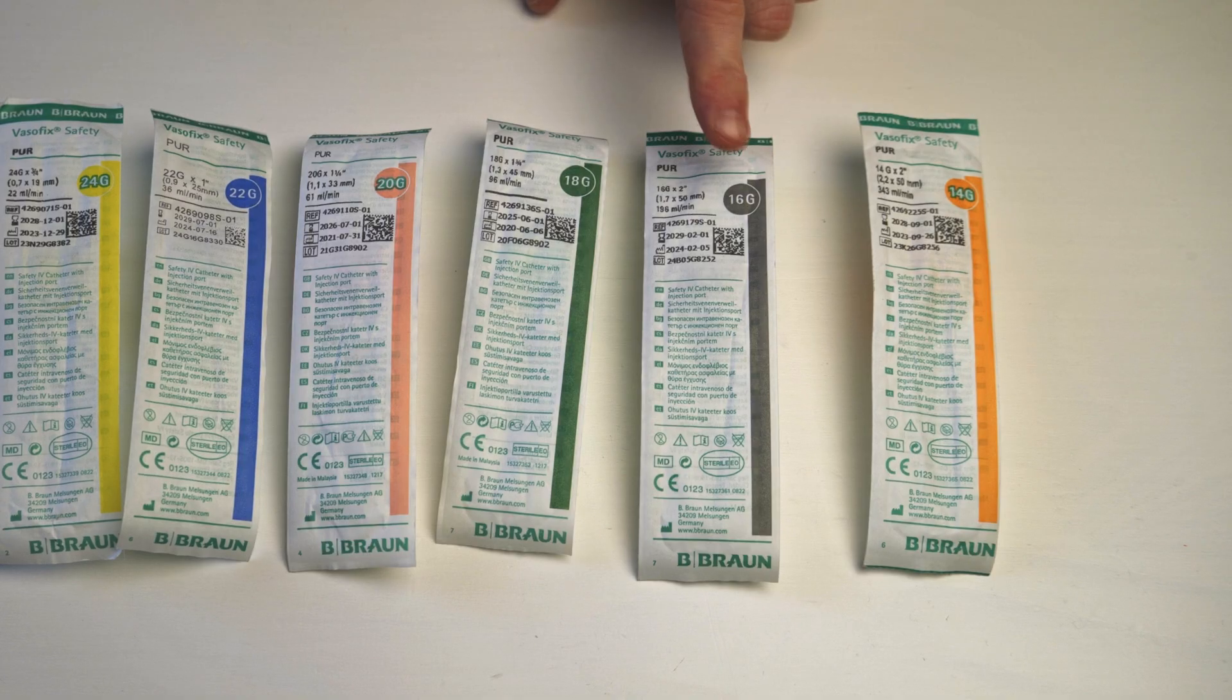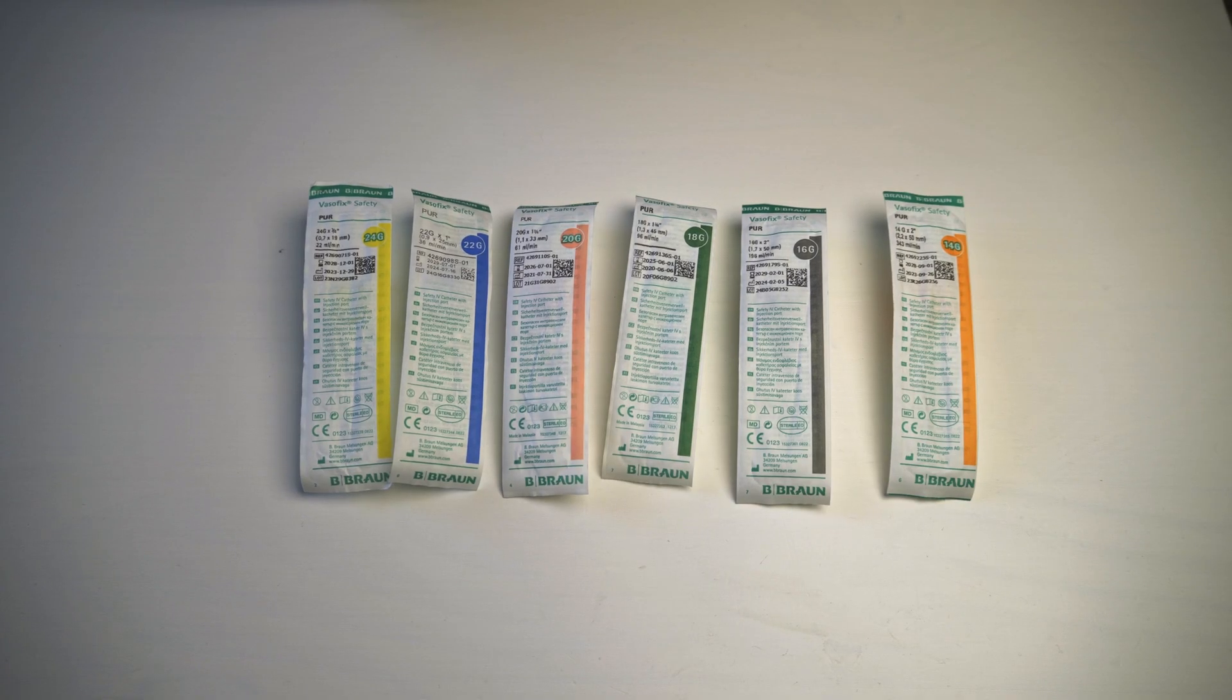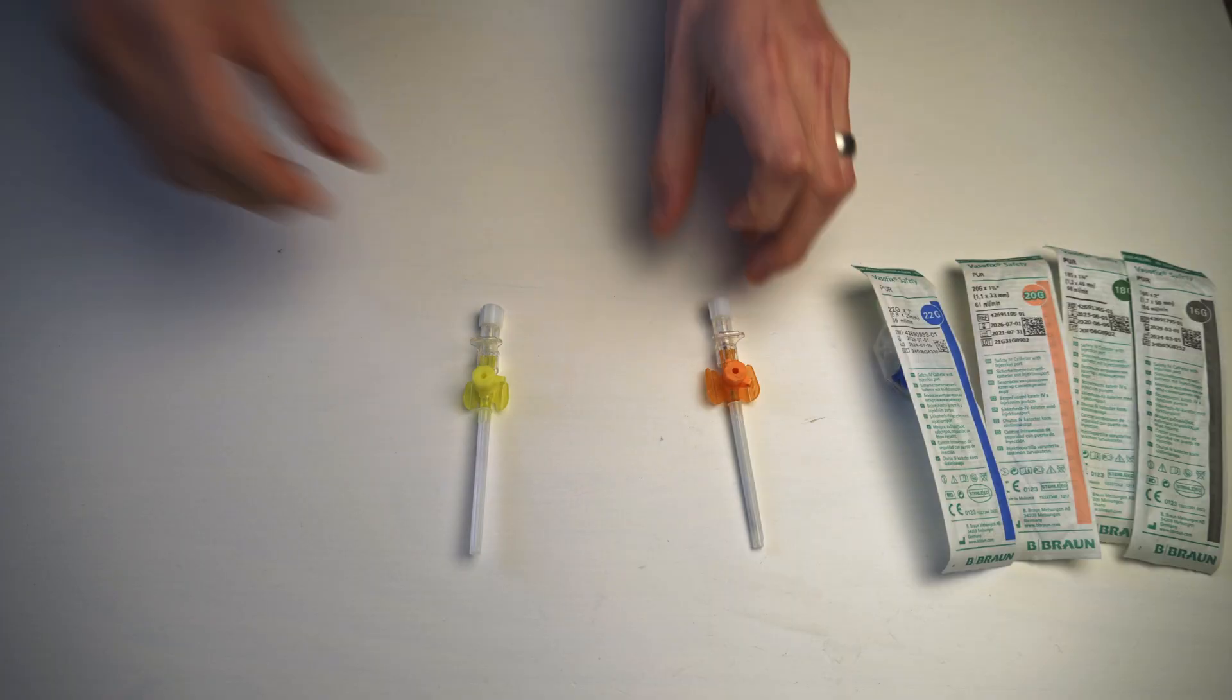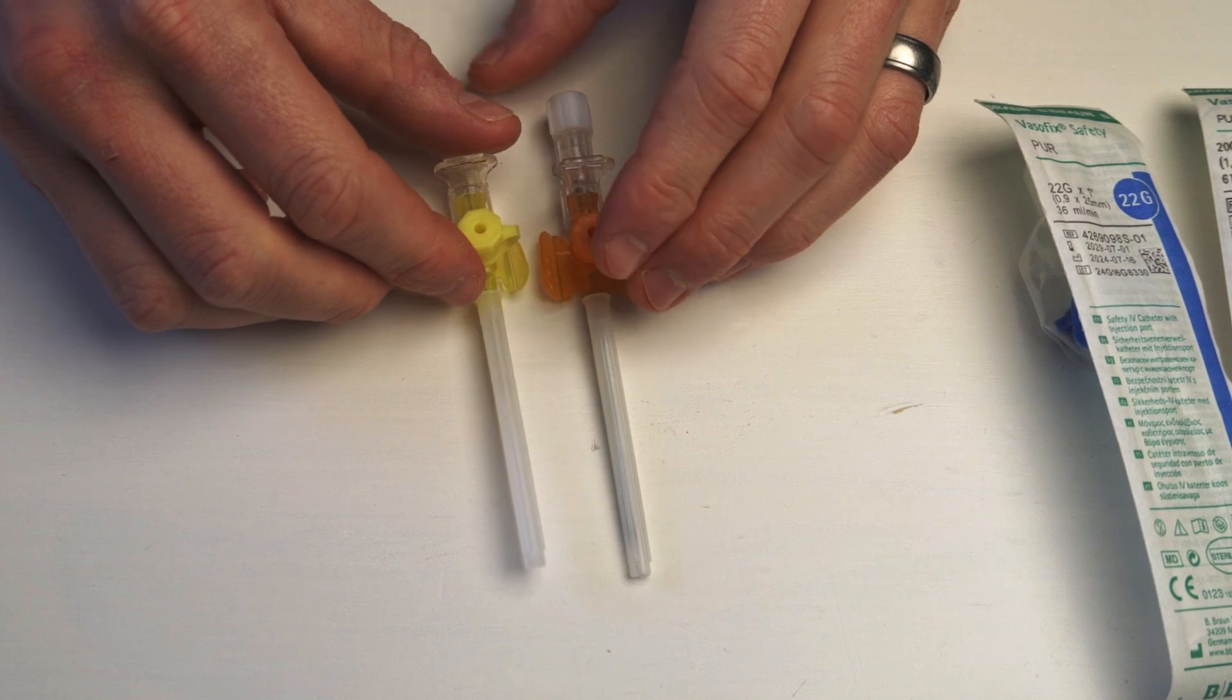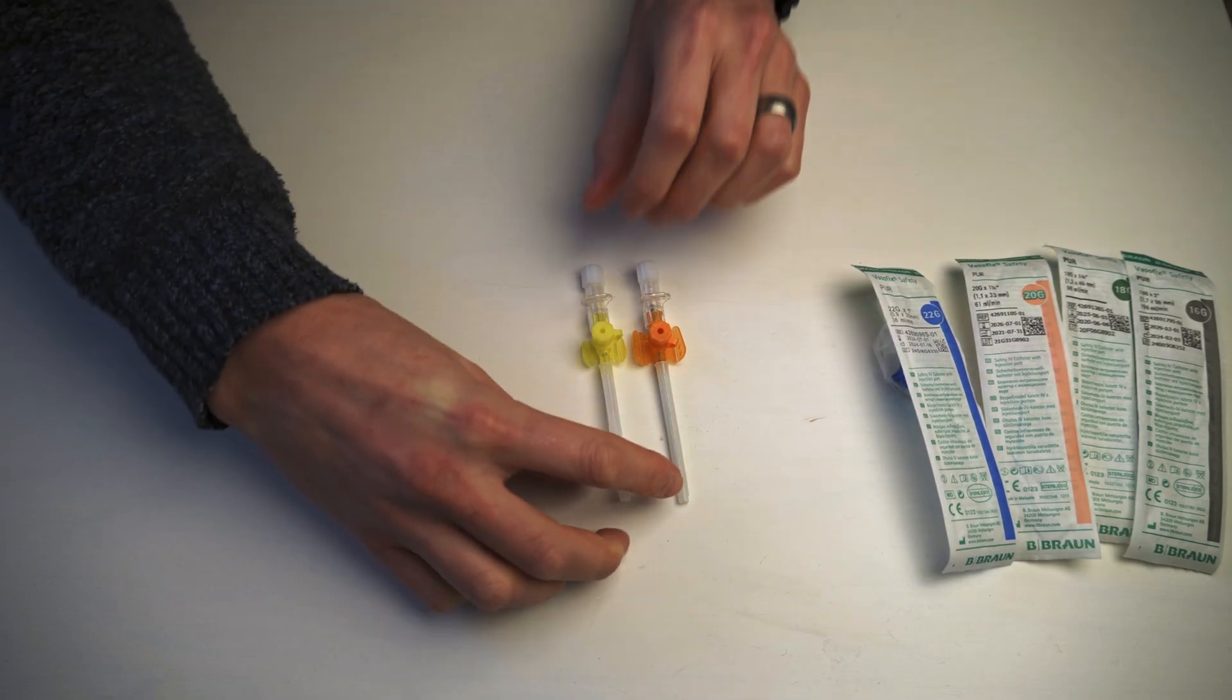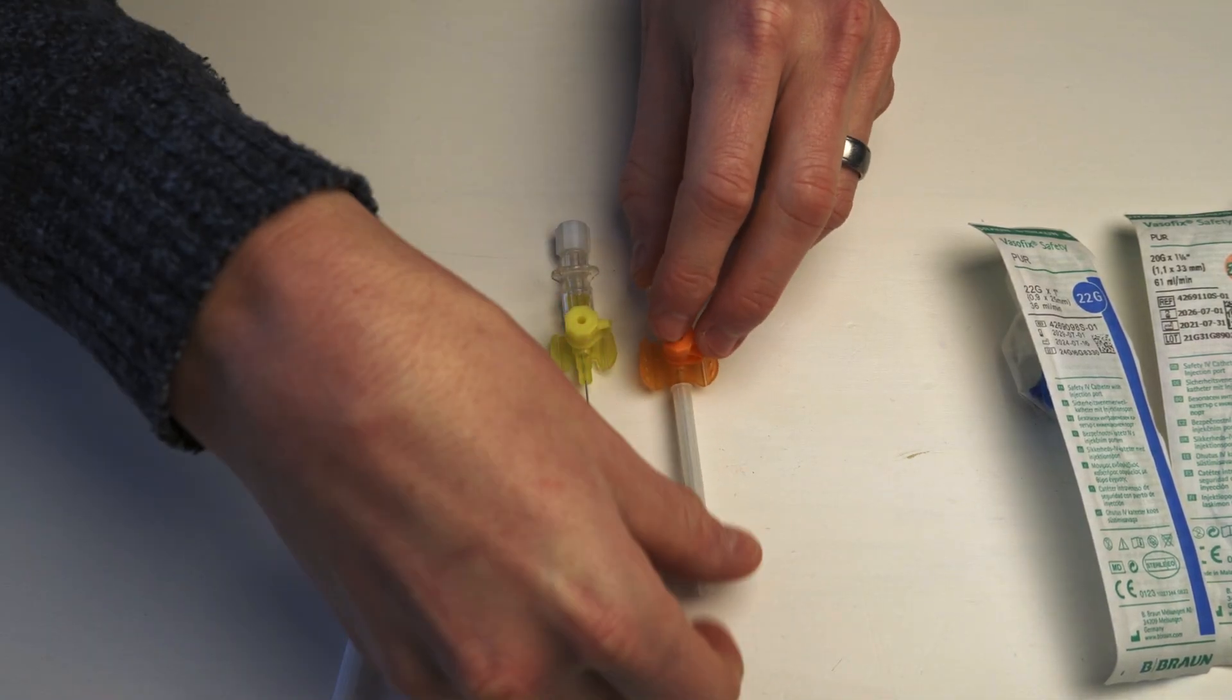My favorite out of interest is the 16. I just feel like it works well. It's the in between, it's not as big. So yeah, let me open up the two on the opposite sides and I'll show you something. So you might go, James, they don't look very different. They're the same length. What are you going on about? Not much to talk about here.